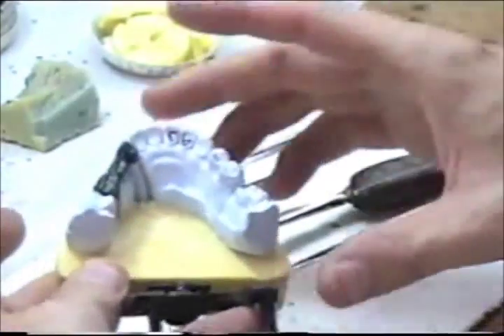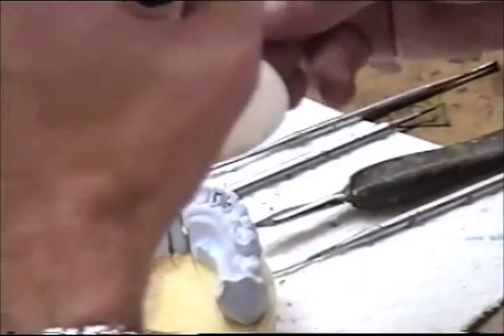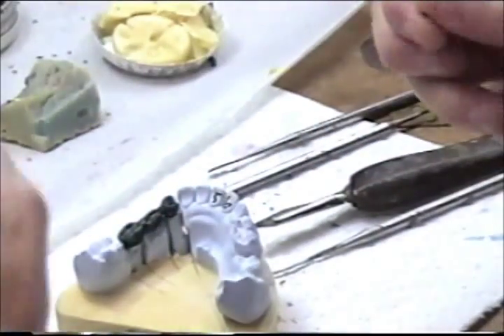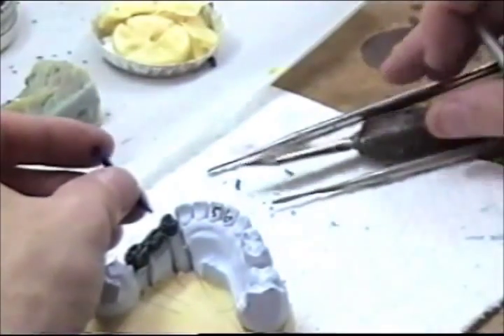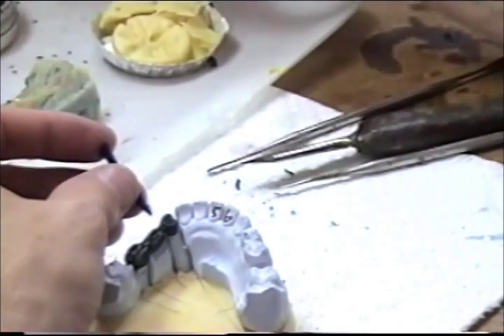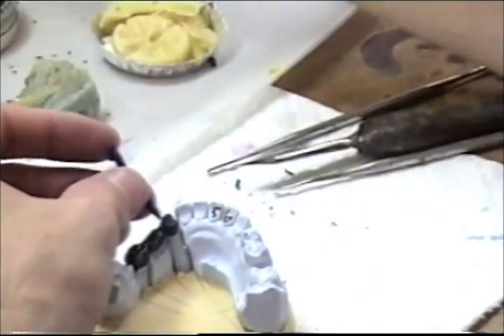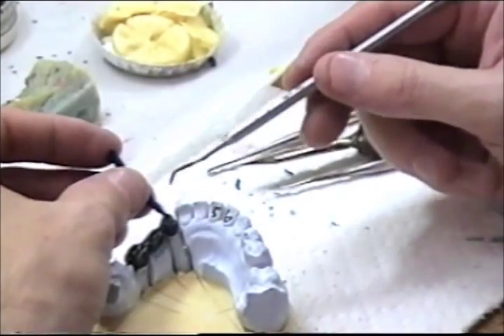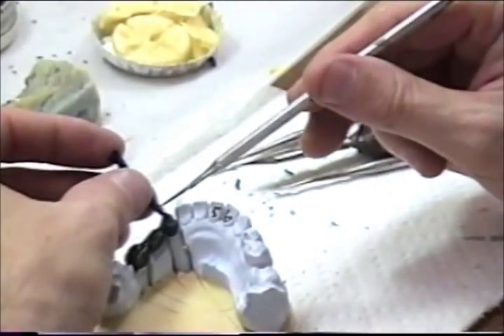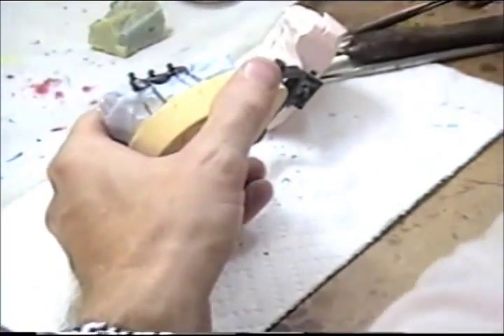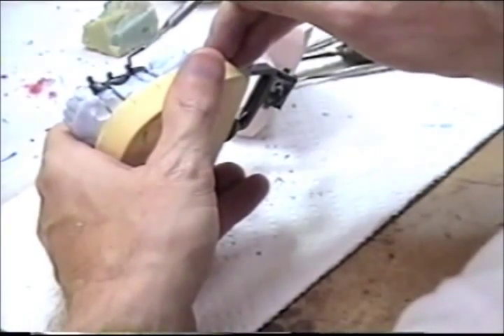What I'm going to do now is get some 8 gauge sprue wax and sprue tips. I'll use red utility wax to loop the sprue onto the copings and go ahead and glue the little wax around the sprues.